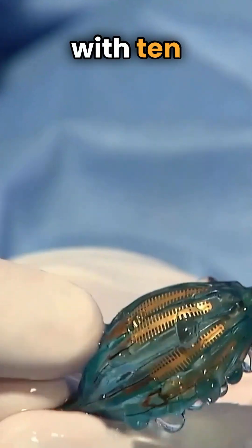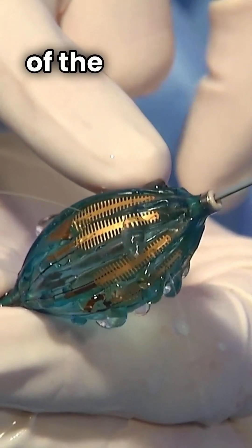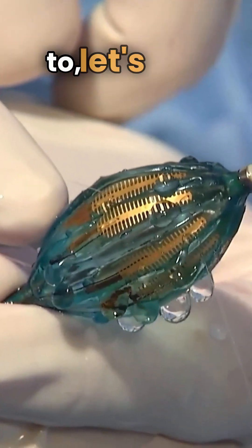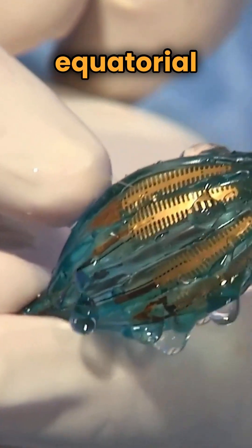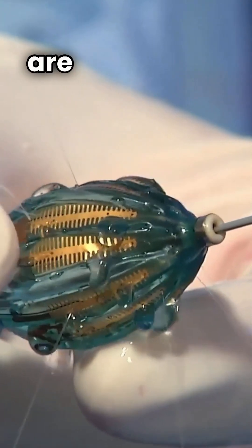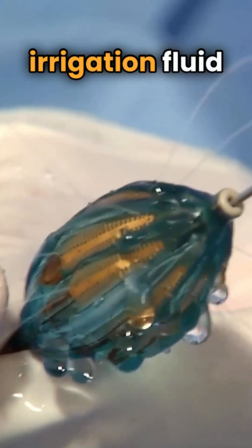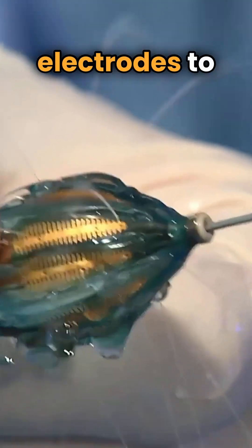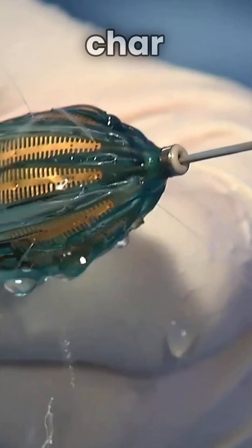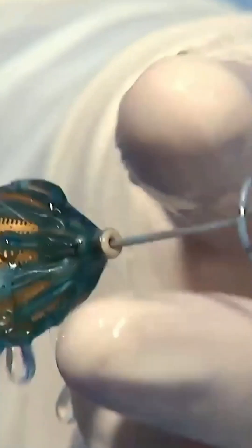It is covered with 10 golden electrodes extending from almost the tip of the catheter to behind the equatorial line of the balloon. These electrodes are actually perforated with a laser such that you have irrigation fluid coming out of the electrodes to avoid coagulant and char formation — so irrigated RF ablation in general.